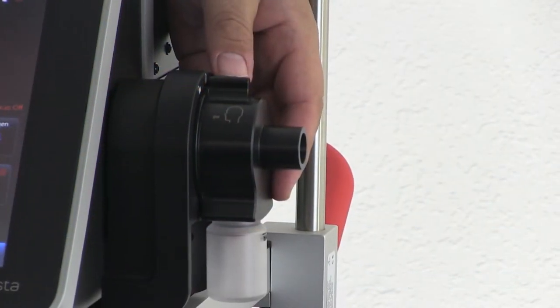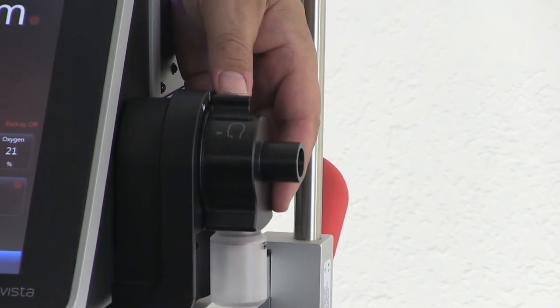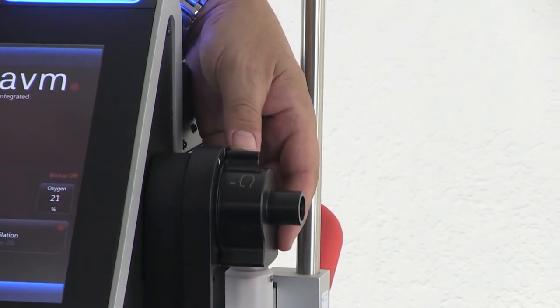We're going to show you how to disassemble and clean the integrated exhalation valve on Bella Vista.